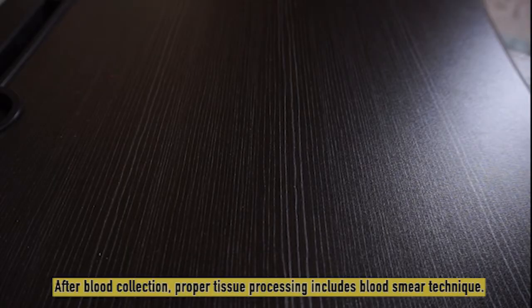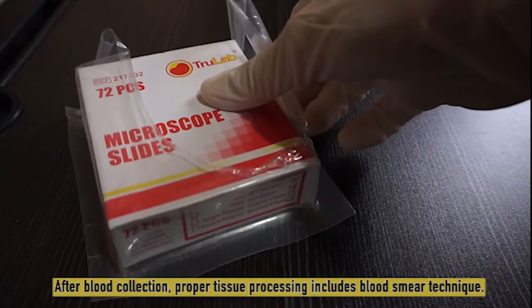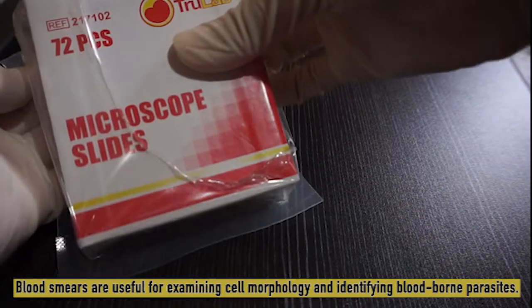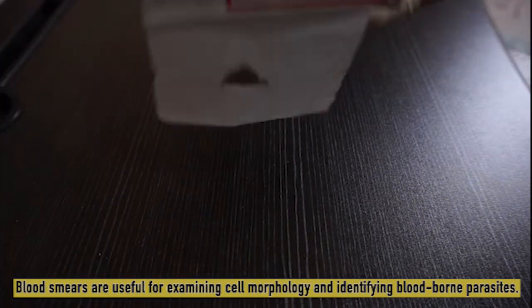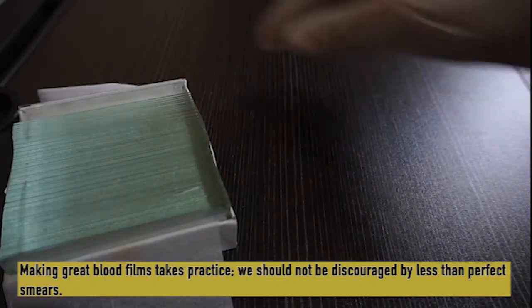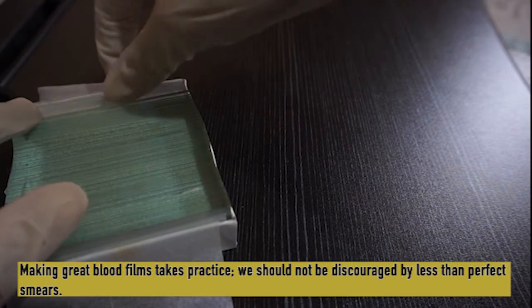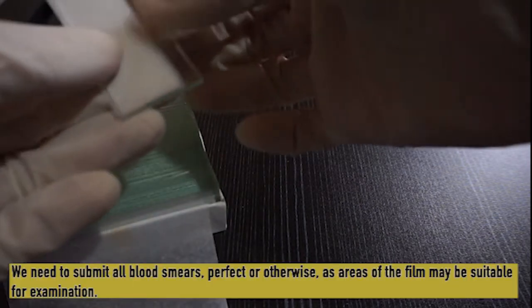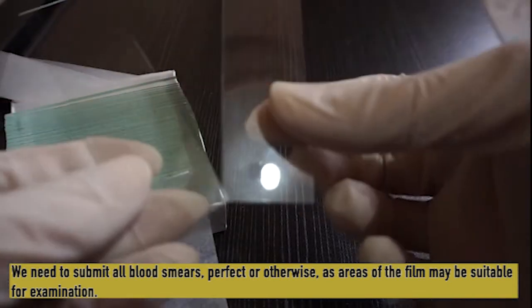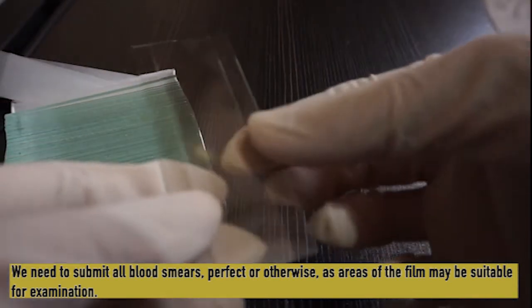After blood collection, proper tissue processing includes the blood smear technique. Blood smears are useful for examining cell morphology and identifying blood-borne parasites. Making great blood films takes practice. We should not be discouraged by less than perfect smears. We need to submit all blood smears, perfect or otherwise, as areas of the film may be suitable for examination.